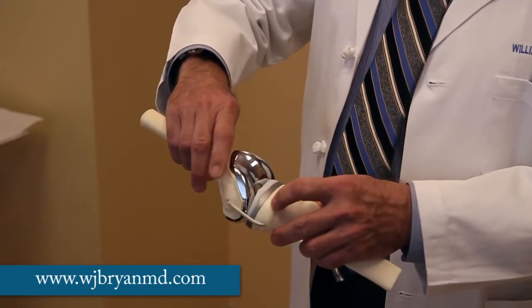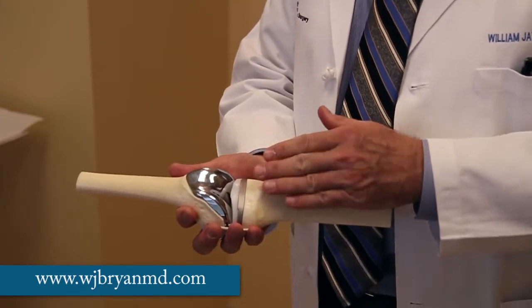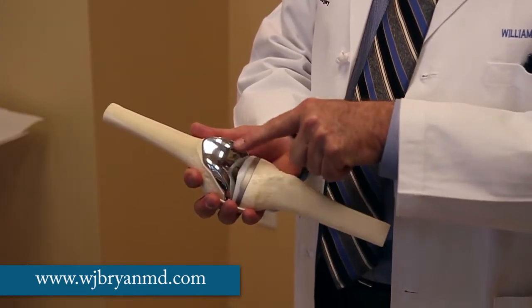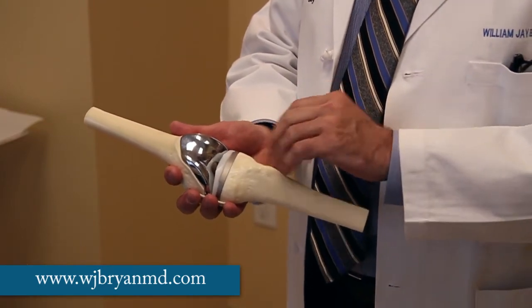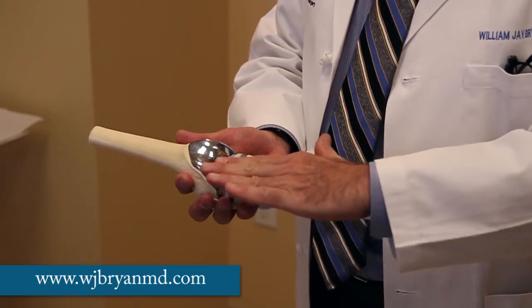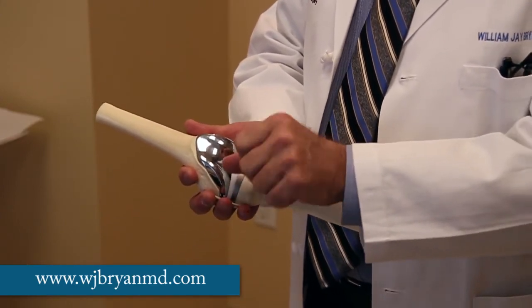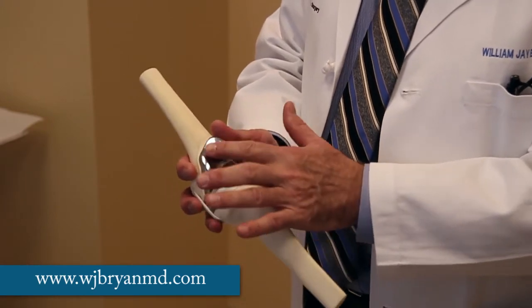This model does not show what happens to the patella. The patella, the kneecap, is in front of the knee joint. And at surgery, the surgeon will flip that over, remove the roughened back surface, and cement a plastic button, which will then ride against the metal.